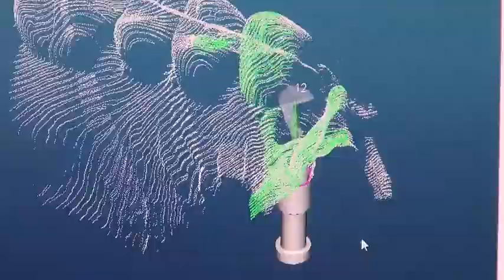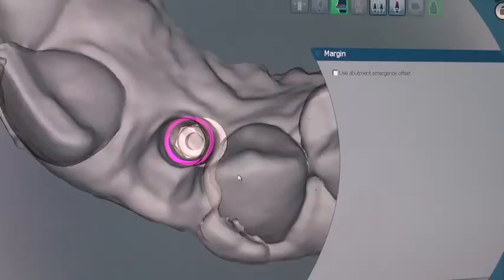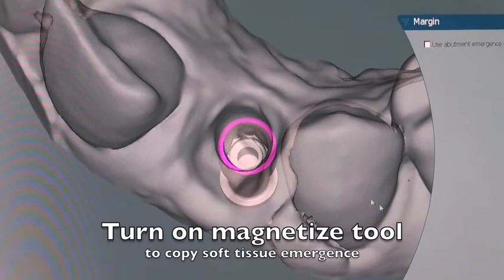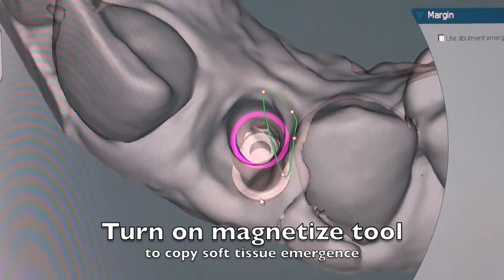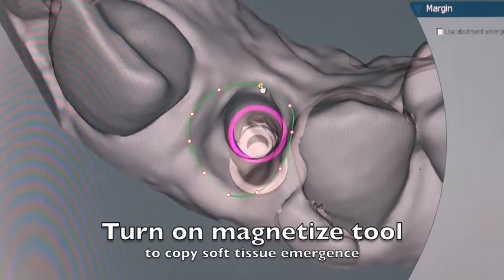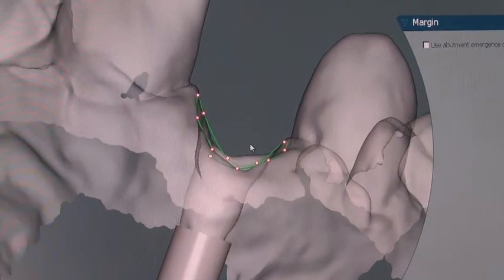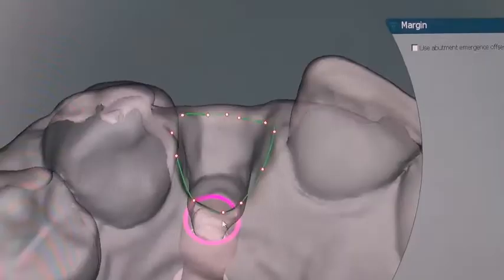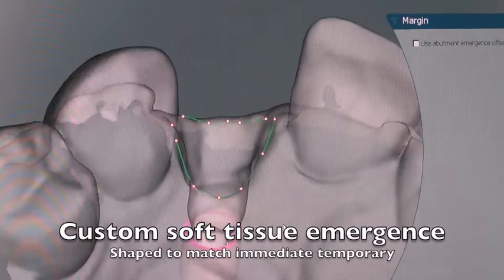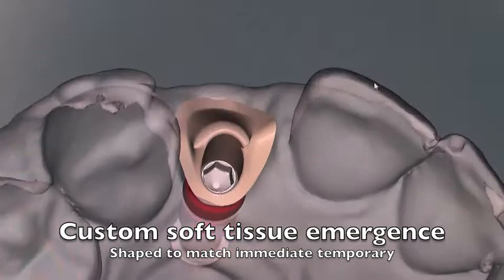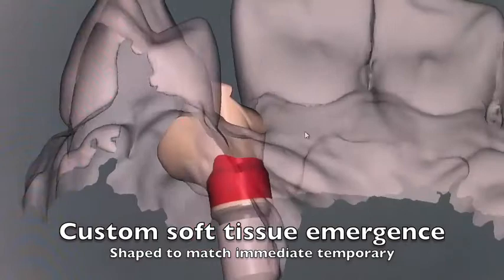After the digital model is made you can see the 3D nature of the soft tissues that have been picked up using customized impression copings. We want to maintain this shape and create the emergence to be exactly the same as the temporary. We use the magnetized tool to create this emergence to be basically exactly the same as what the tissues are in the patient's mouth. This is a systematic approach to creating the emergence profile at the time of surgery, maintaining the emergence that was actually there from the start — the ideal way to do it because you maintain the tissue. You'll see how the bone responds when we finish this case. It's actually fantastic.